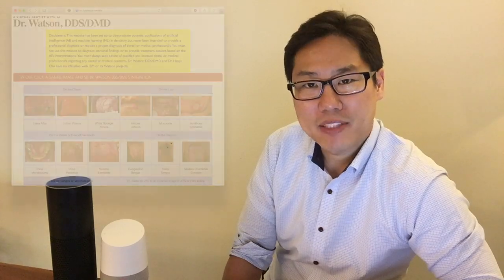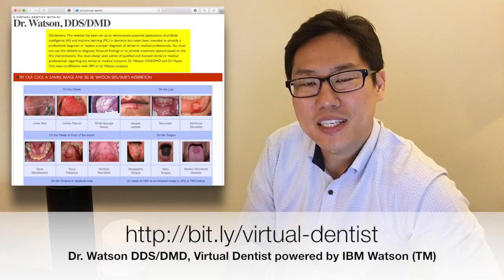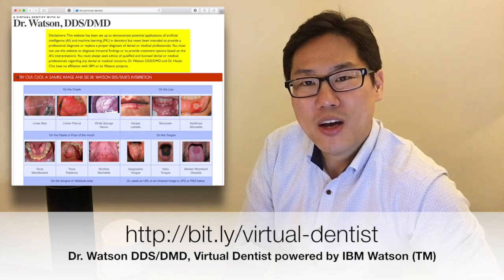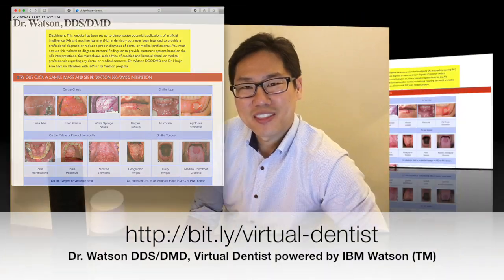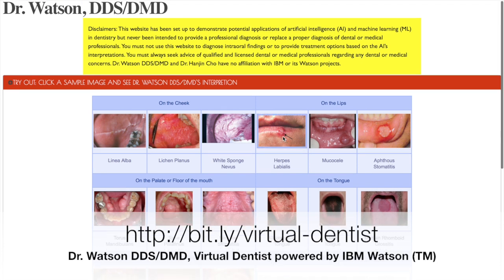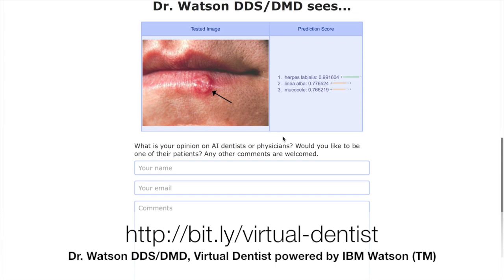Also, I'm currently working on connecting this virtual dentist to a smart speaker like Amazon Echo and Google Home so that we can easily interact with it. The good news is that I have set up a website for you to try out this virtual dentist without a smart speaker. So please follow the link on the screen and try it out for yourself. For now, Dr. Watson DDS DMD has been trained to recognize 15 different oral lesions and clinical findings.